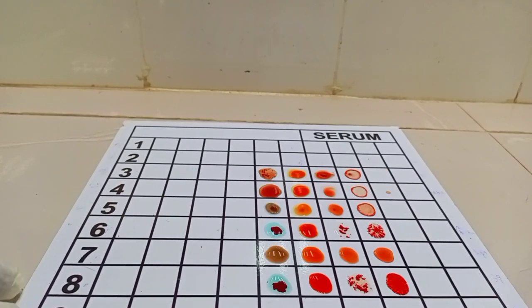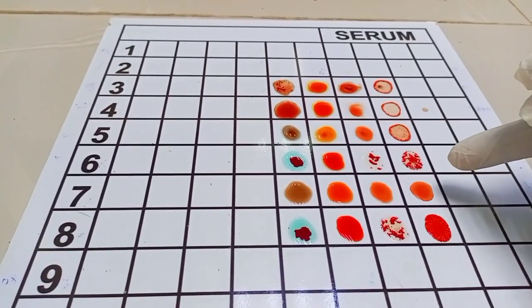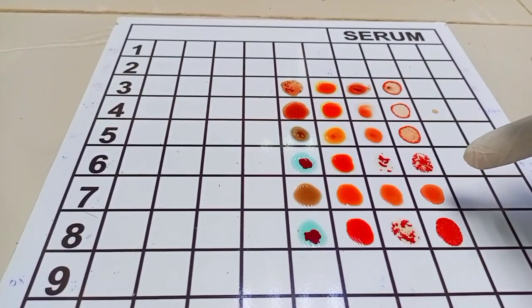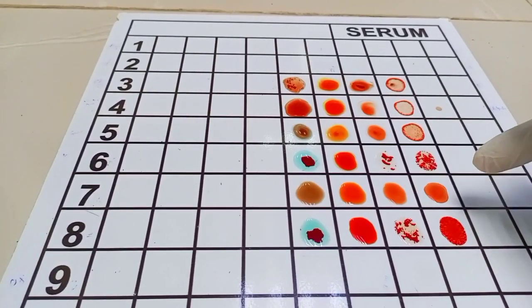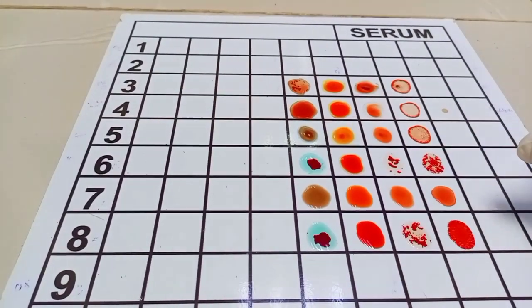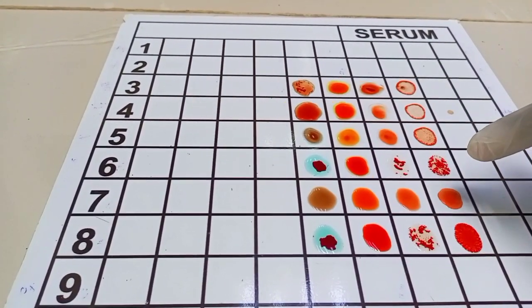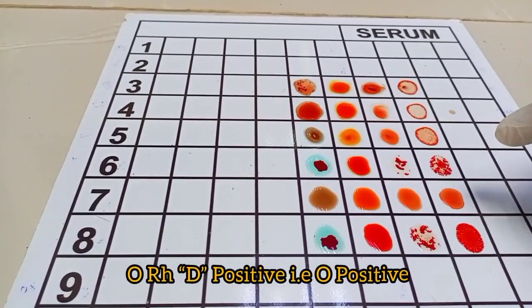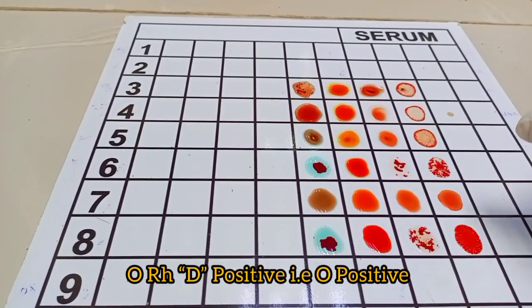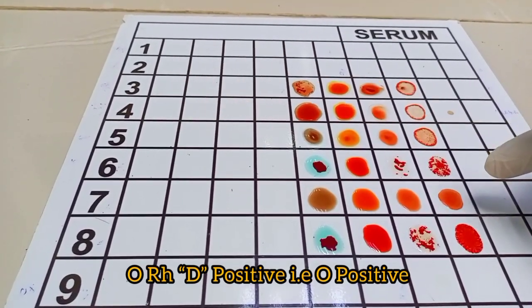If you look very well, you will see that there's an agglutination reaction in the anti-D column, and of course there's no reaction in every other column. So what this means is that this sample is O rhesus D positive. That's the blood group of this sample: O rhesus D positive.